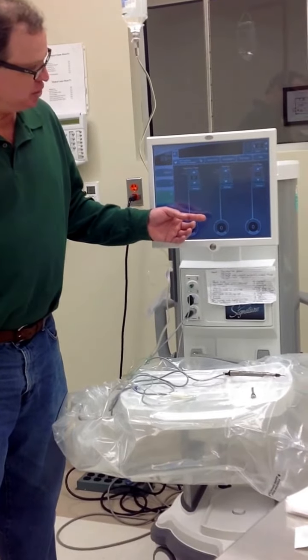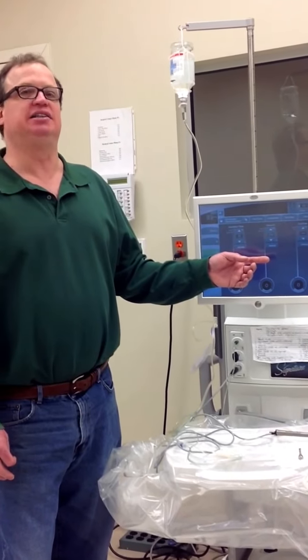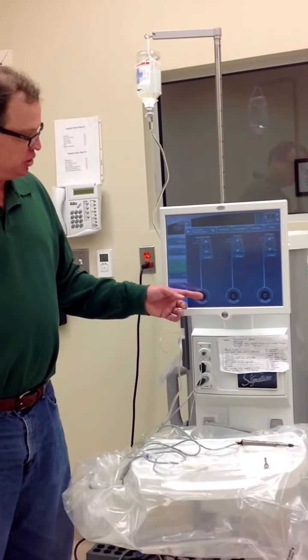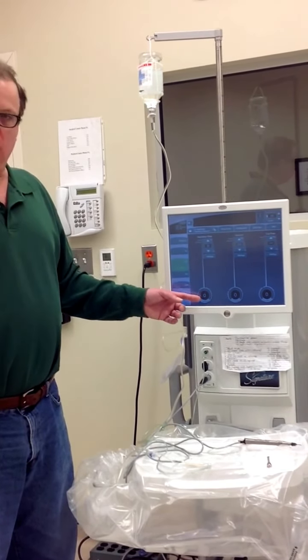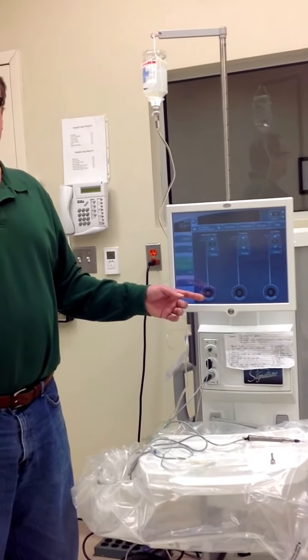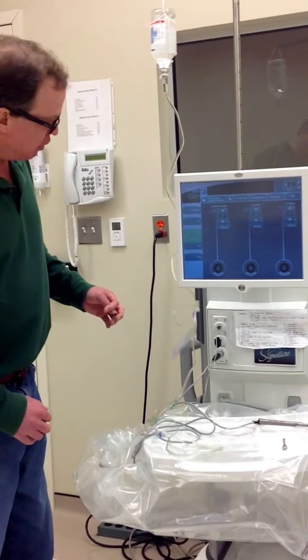engaging before the aspiration. One of the most important things to watch for when a doctor starts doing a vitrectomy, because they don't do vitrectomy often, is that a lot of times the doctor will step down and initiate cutting, but not step down far enough to initiate aspiration. So you have to watch this flow meter over here to ensure that the doctor is stepping down far enough to actually be removing vitreous. Very important, very important.